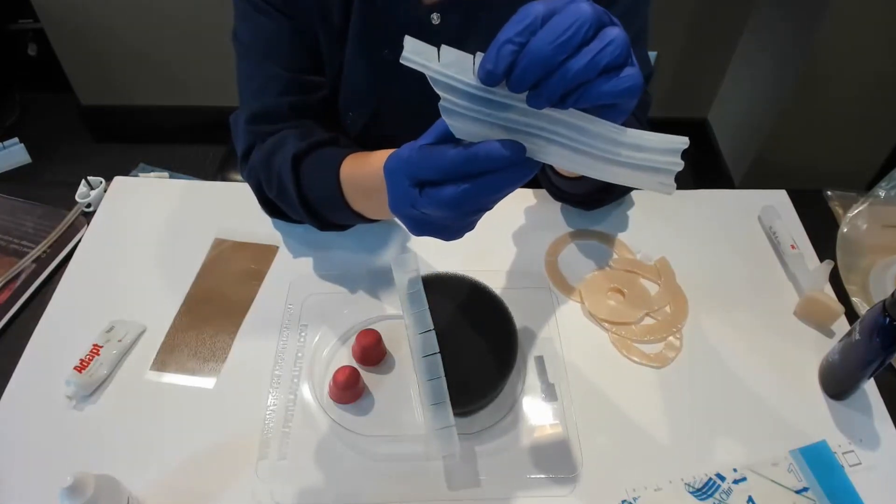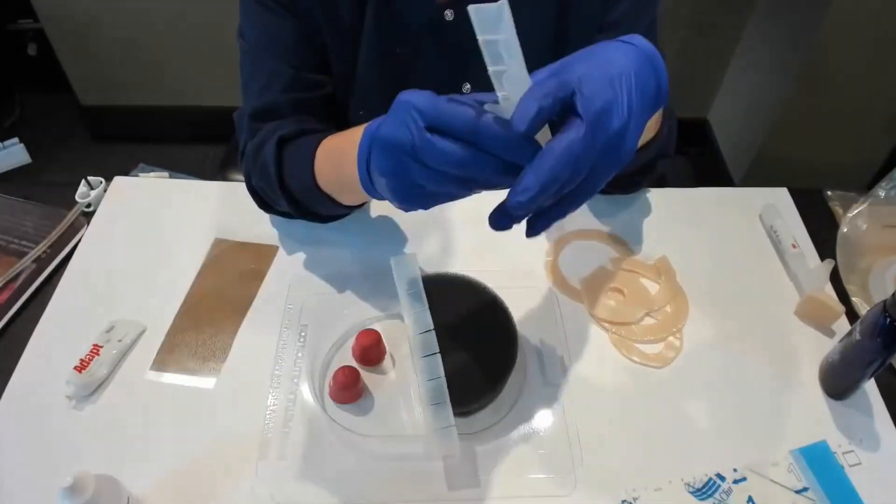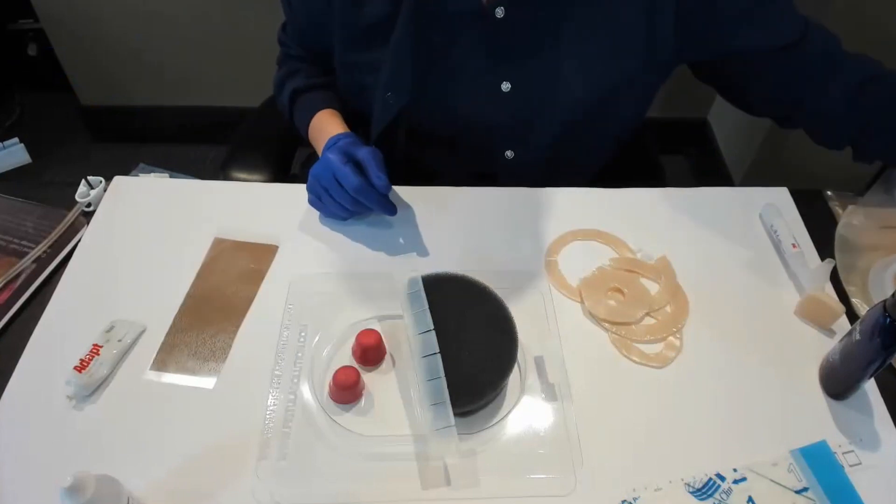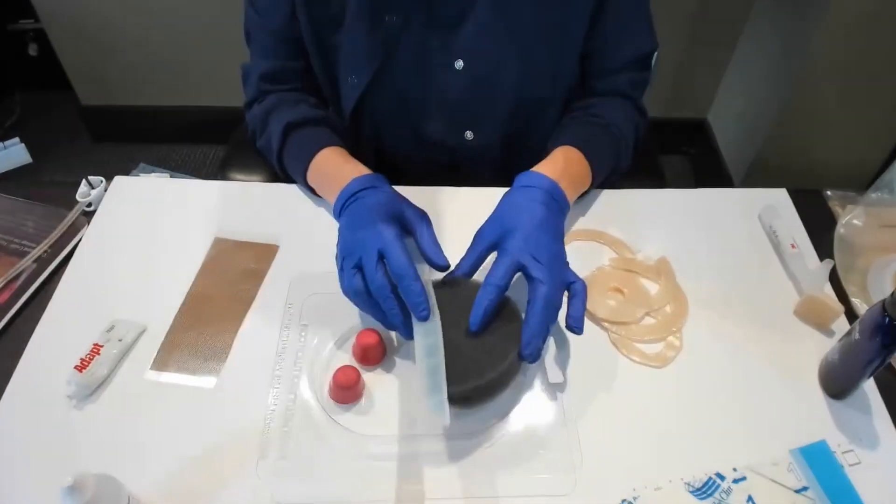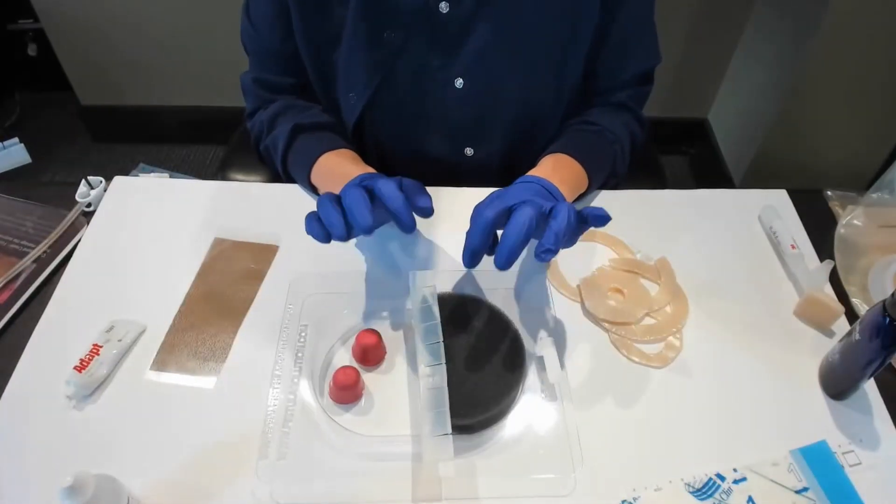It kind of looks like this in real life or whatever your wound edge looks like is what you're looking for. But for the tray demonstration, I'm going to go like this.